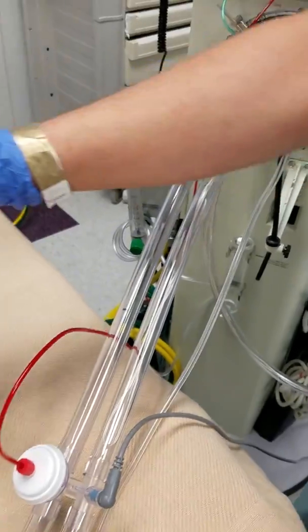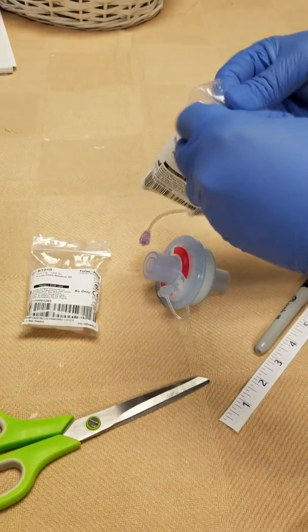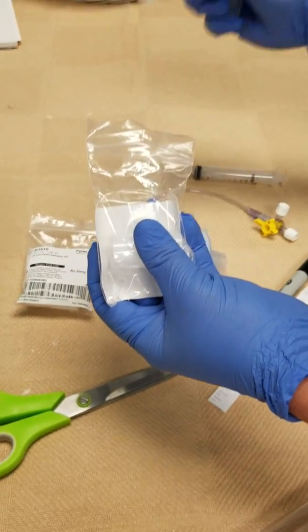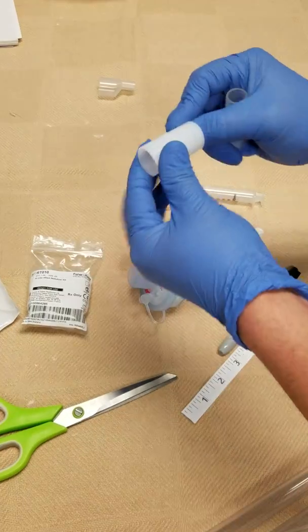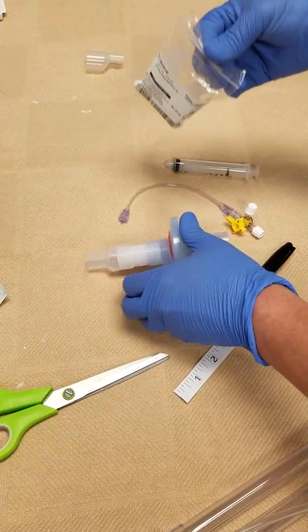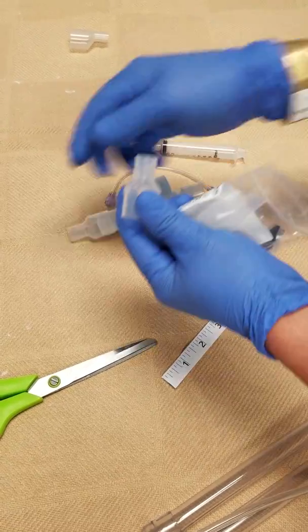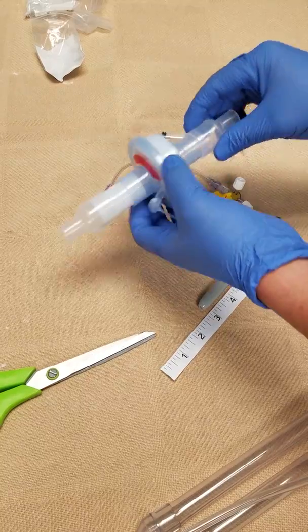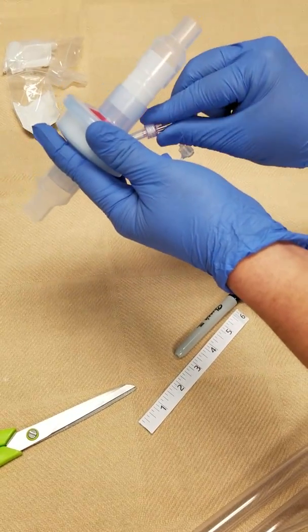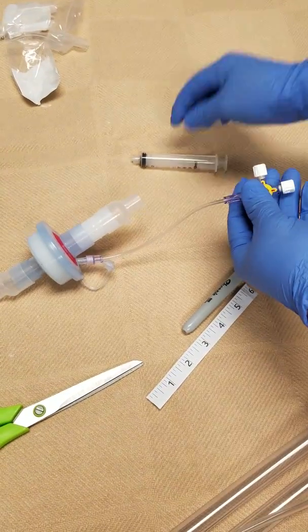Let's move back and get everything ready to go. I'm going to need two out of three pieces in here — we don't need this offset port. You need the 22-millimeter that will fit right here, and then fit right here. On the second one, I only need the center port and the rest can be thrown away. I'll go ahead and connect my drainage port so I won't forget later on. Make sure it's tight so it doesn't pop out easily, and then I put my fancy syringe.